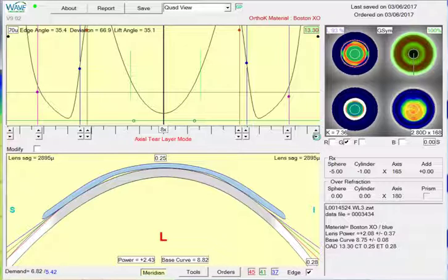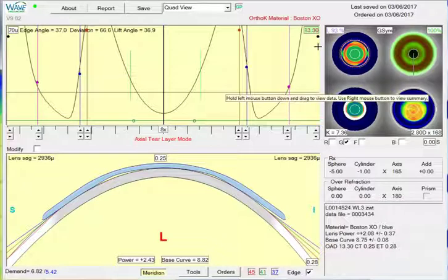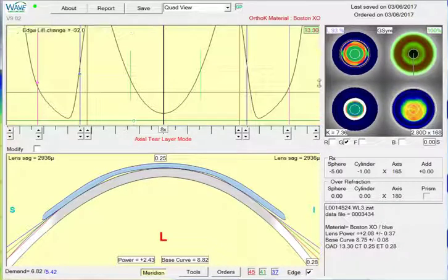So that's just going to be out here. And it's going pretty slowly, so drag the dot. So basically we're just reducing sag at the very edge of the lens.